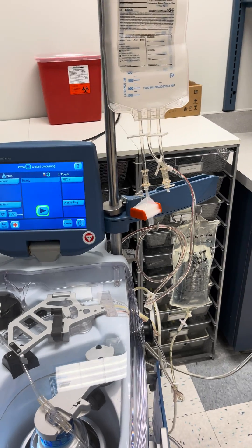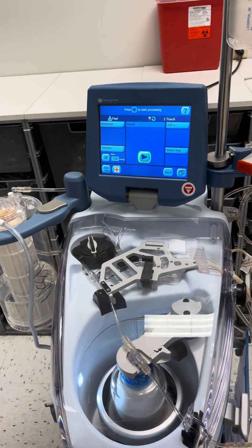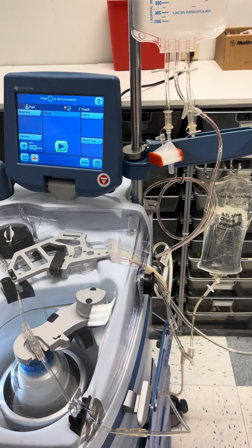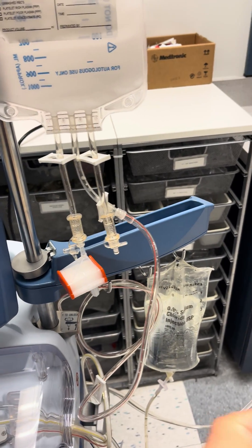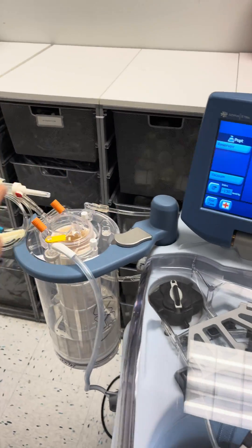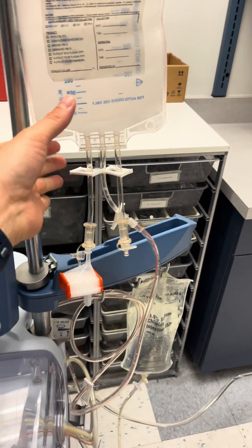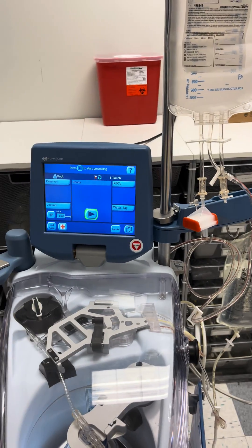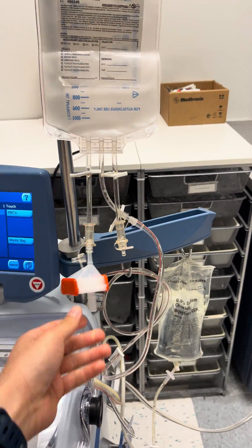Professor Archer mentioned Jehovah's Witness patients — many don't accept blood products, and many don't even accept Cell Saver blood, which is technically their own blood. One way to work around this — and it varies patient to patient — is if the system is already connected to an IV or central line that's inside the patient. Technically that creates a closed circuit: the aspiration line is at the field, inside the patient, and blood travels all the way around and back via the central or IV line. Some patients are okay with that closed circuit approach.